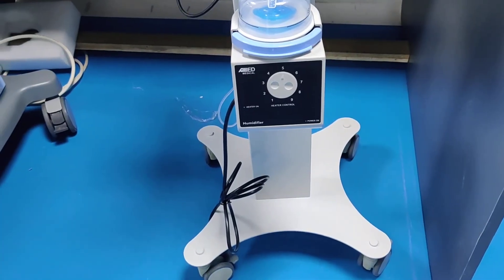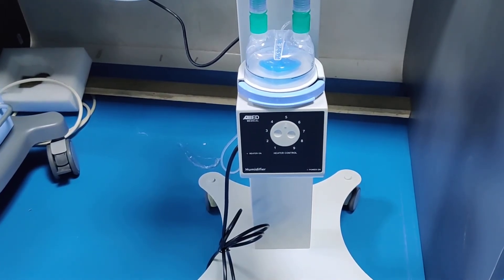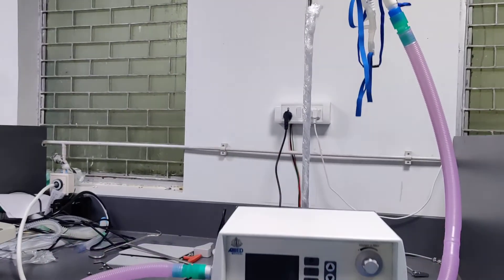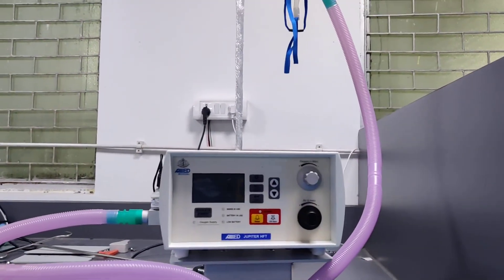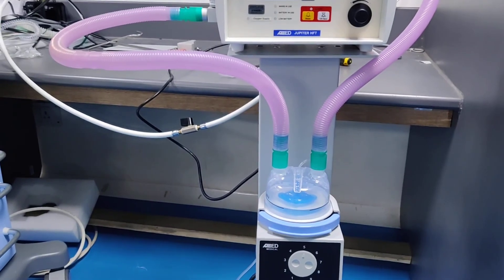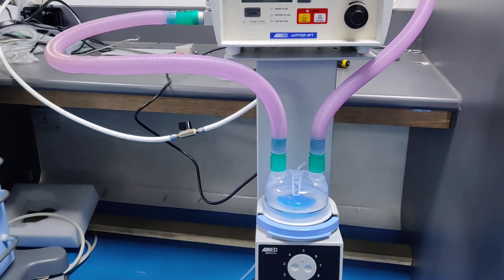Regarding the scope of supply: a humidifier is included as a standard accessory with the Allied Jupiter high flow therapy machine. A trolley with a hook on top for mounting circuits is also standard. One circuit is supplied for connecting the HFT machine to the humidifier, nasal cannula, and patient, and five air filters are supplied as standard accessories.